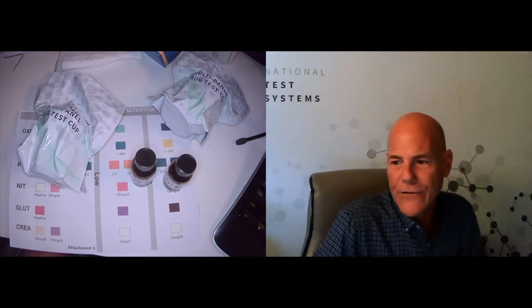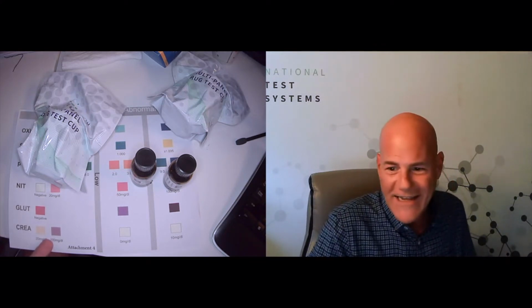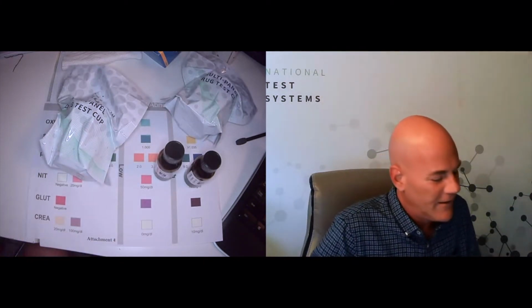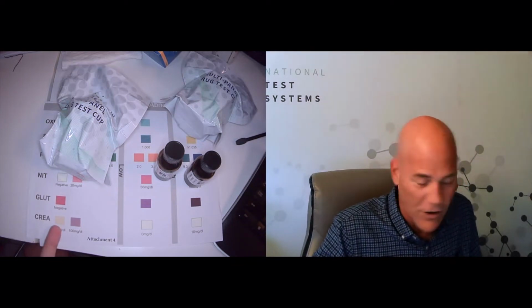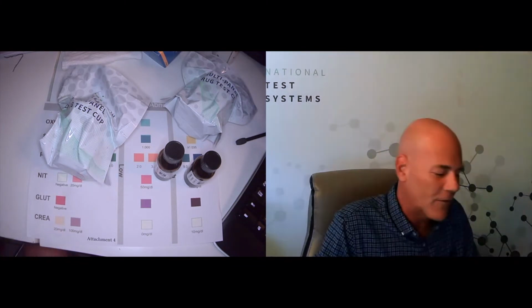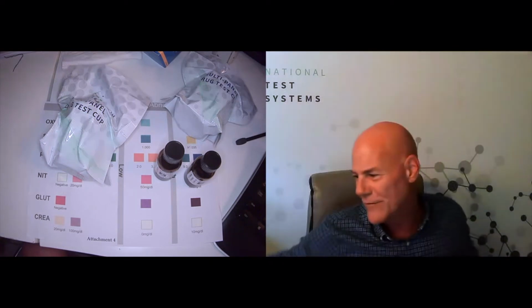Second part of that is we're not looking at a digital readout. When we look at the creatinine, we're not seeing a nice readout that says 21 milligrams per deciliter. We're going to use some judgment here. If you're looking at a color and you can't quite tell if it's lighter or darker than this cream, again, with the creatinine especially, you're pretty diluted already. You're down near the 20 milligrams per deciliter compared to the 140 or so average that we talked about before.